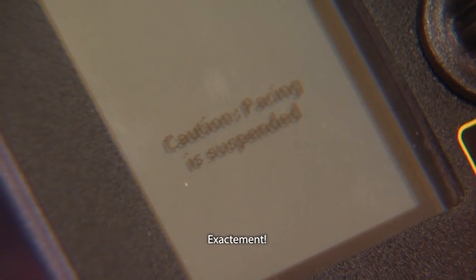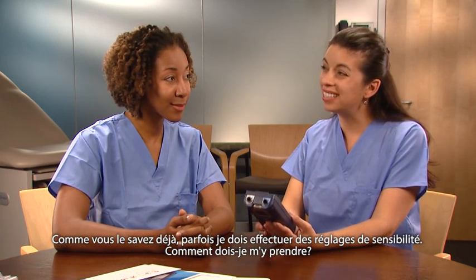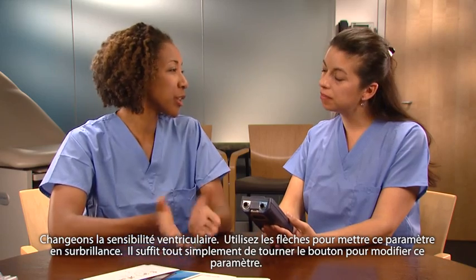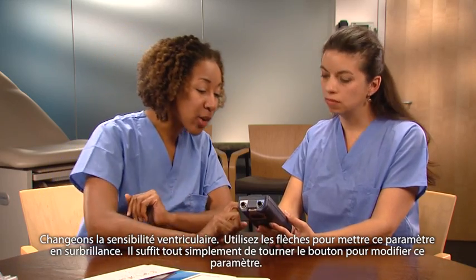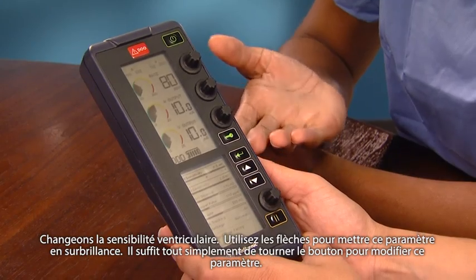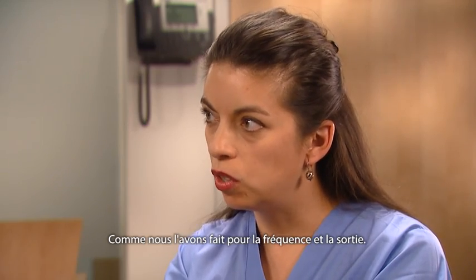The message states that pacing is suspended. There certainly are times when I need to adjust sensitivity settings — how would I do that? Let's change ventricular sensitivity. Use the arrows to highlight this parameter. Changing the setting is just a matter of turning the dial, like we did for rate and output.